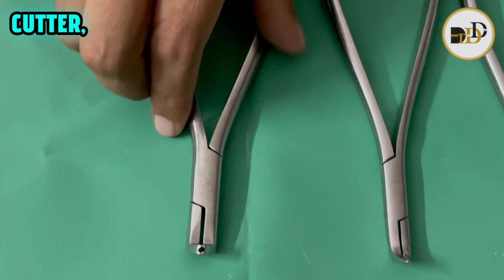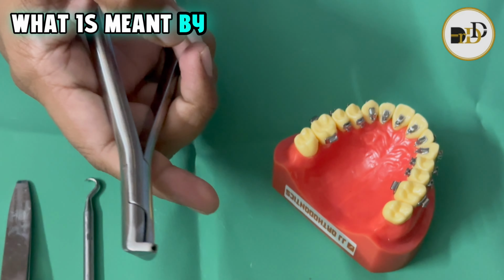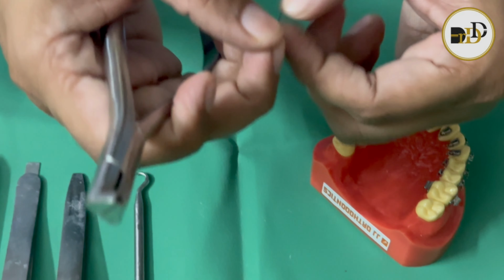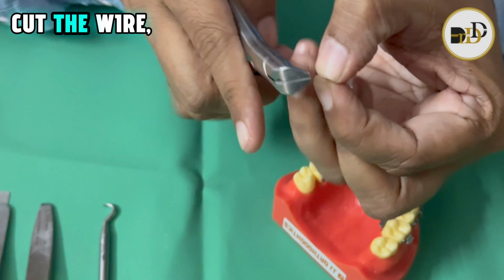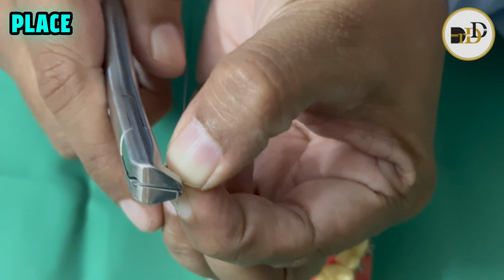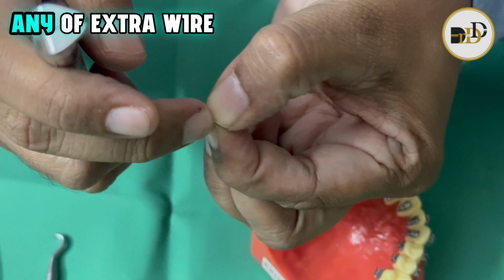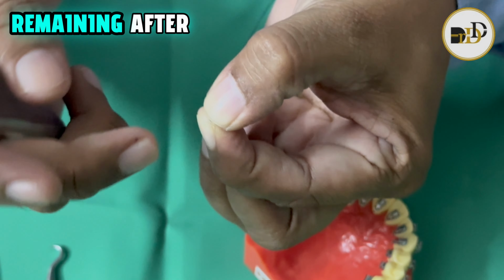And this is the distal end cutter. This is a flush cut distal end cutter. What is meant by flush cut distal end cutter is that when we want to cut the wire, we can hold exactly at that particular place and cut, so there won't be any extra wire remaining.